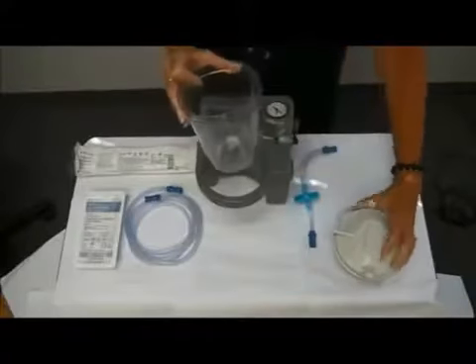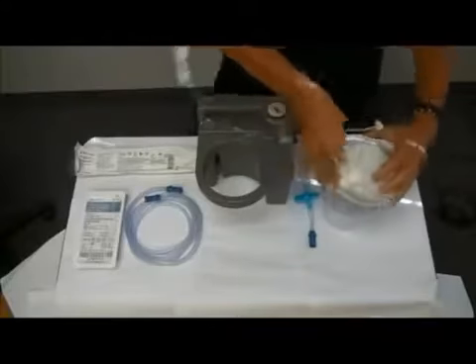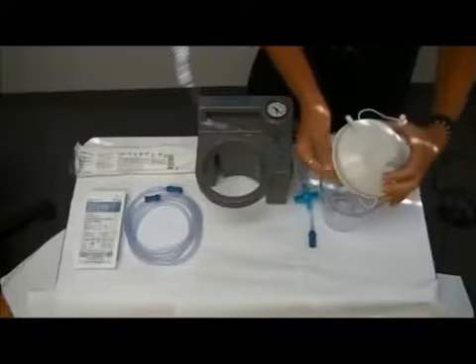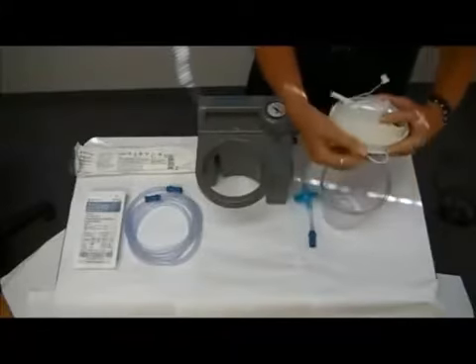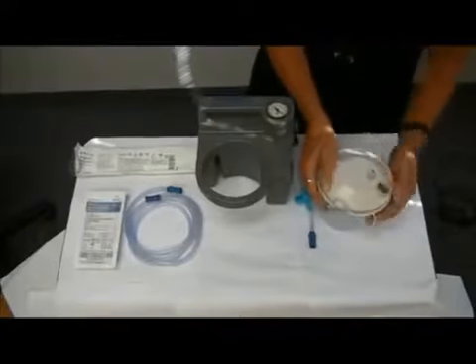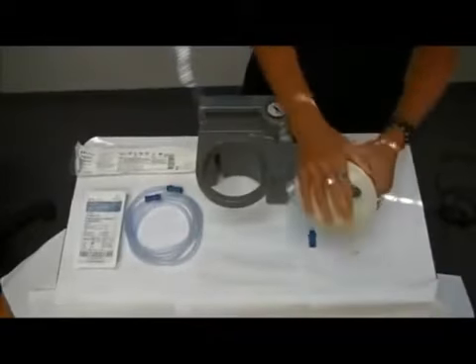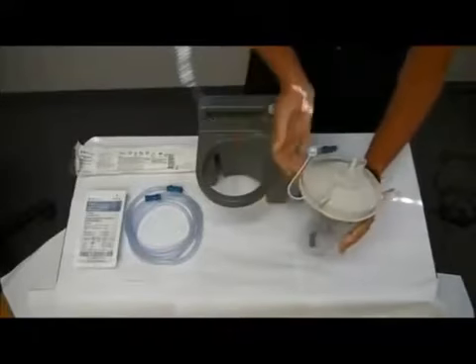This canister has a lid, and when you put the lid on, you want to make sure that the lid snaps on tightly. One thing to be very careful of is that nothing gets tucked under the lid to cause any sort of opening. Make sure that everything is outside of the lid, then snap the lid on tight. Look all the way around the lid to make sure that it's straight — you don't want to see any sort of opening.